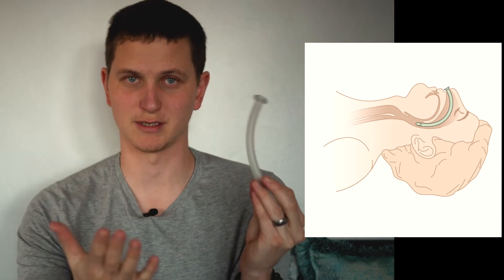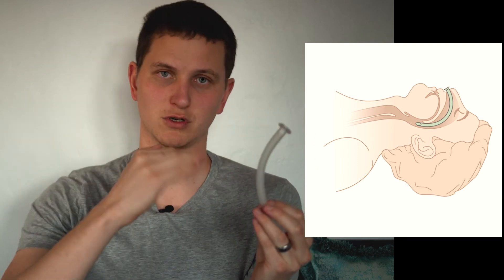They say this won't make you gag, but this made me gag — very unpleasant. I read in a textbook, I think it was the ACLS textbook, that if it's too small it's not going to do what you want, but if it's too big it could go into the esophagus. If you push it down into the throat and it goes under the trachea — which it should, being more posterior since the trachea is anterior — and it sits in the esophagus, then when you BVM them, air will go straight into their stomach.